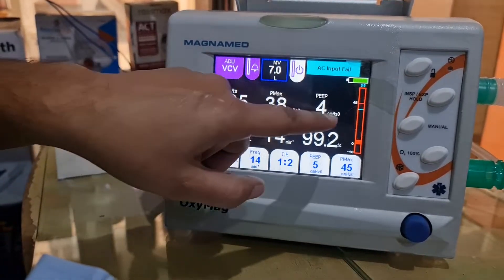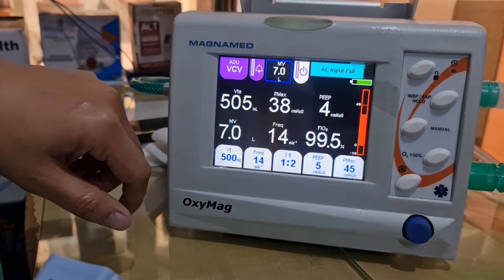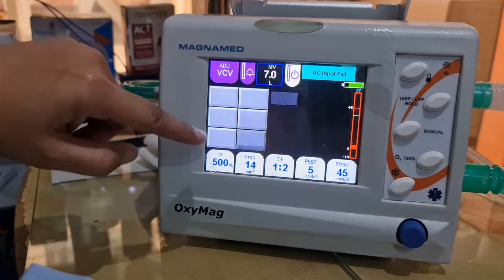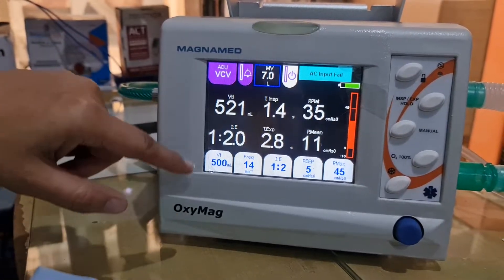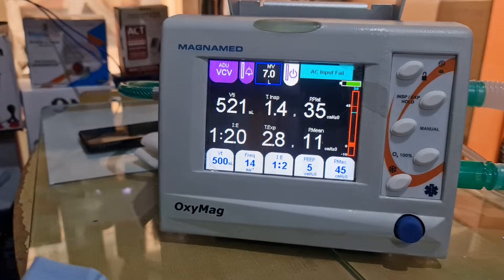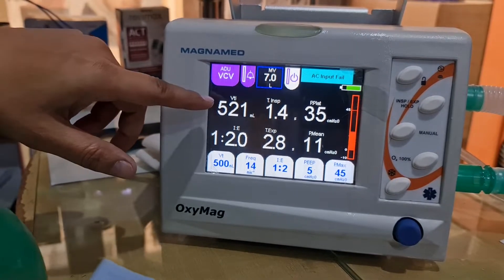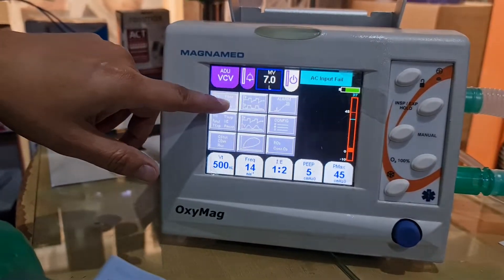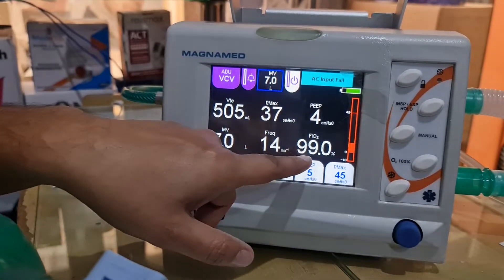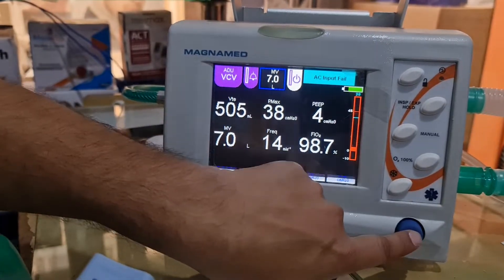These are the expired parameters, and these are the inspired parameters. FiO2 is reading 99 to 100 percent, which is what we have set.